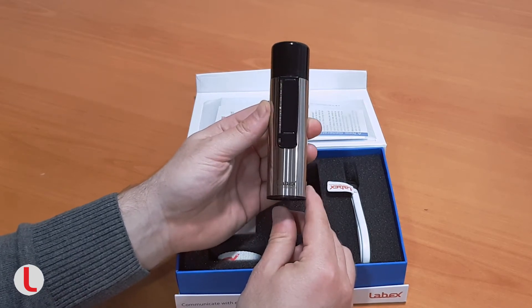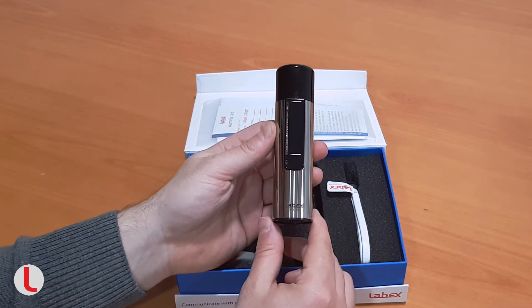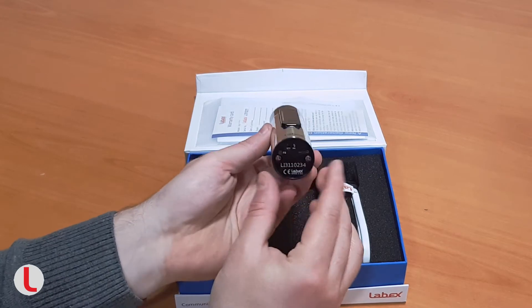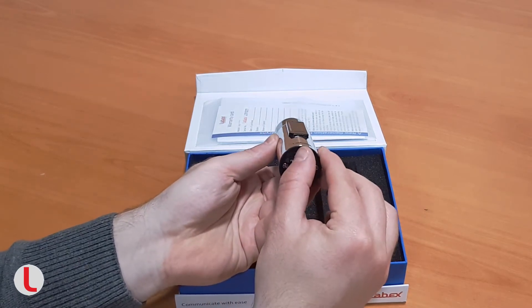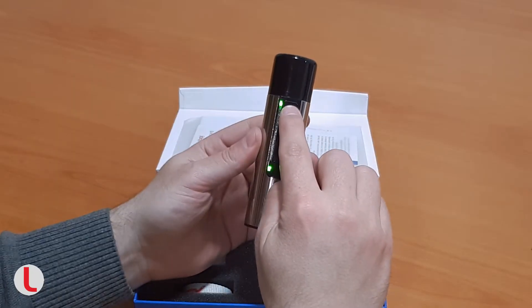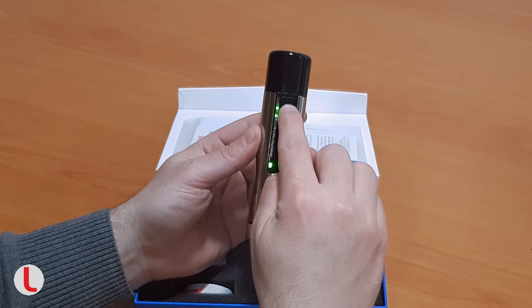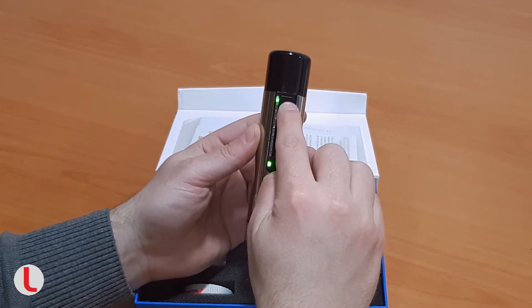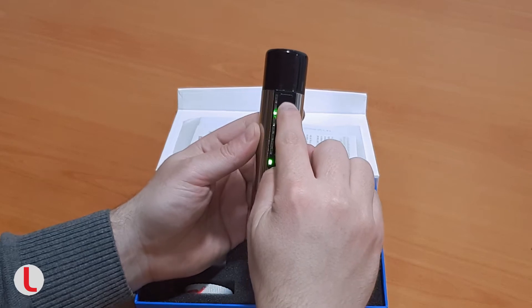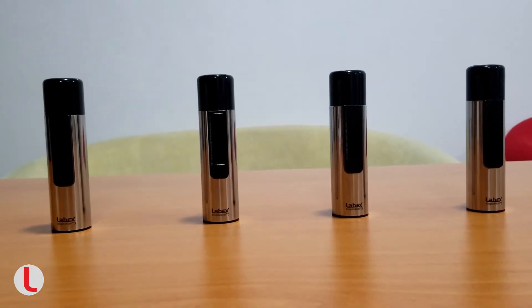In this video you will see the different possibilities the device provides. The Inspiration comes ready for use. To turn the device on, simply switch the on-off slider on the bottom cap. The device starts emitting sound with the touch of the control panel. When released, the sound stops. It is not skin dependent and you can use it with gloves on.